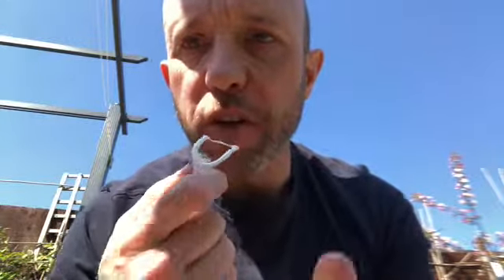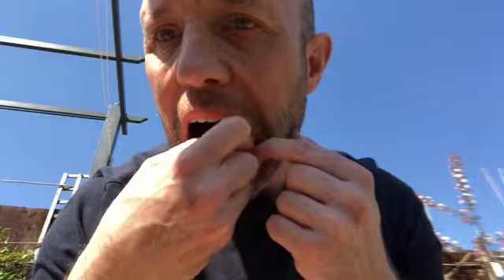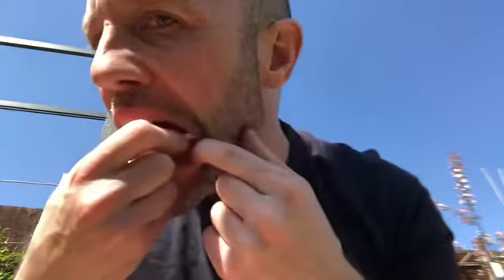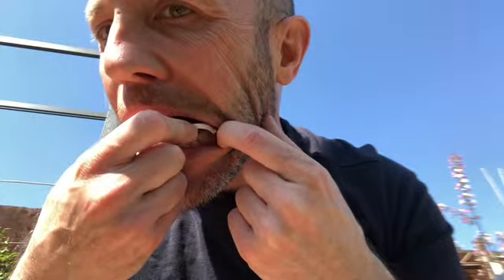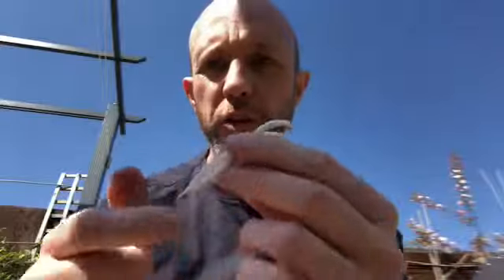It's hard to see on the video, but I'm going to demonstrate — moving back in the mouth a little way to my pre-molars to do a back one, just so you can see the ease of using the fork-shaped ones. You've got a little handle to hold on to, which is quite good — you don't have to wrap it around your middle fingers and use your thumb and four fingers to control it, so it's a lot easier in most respects.